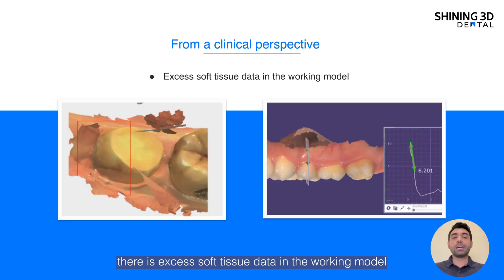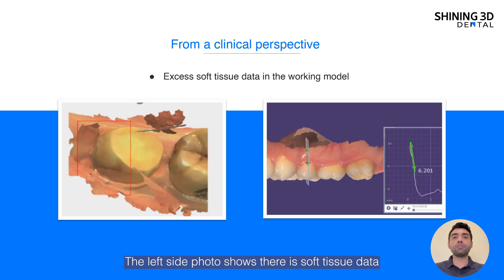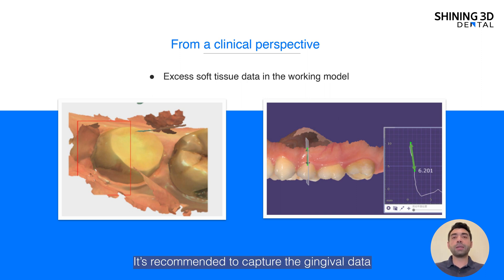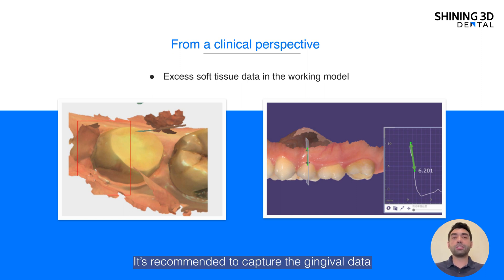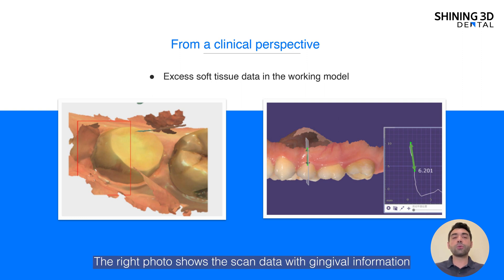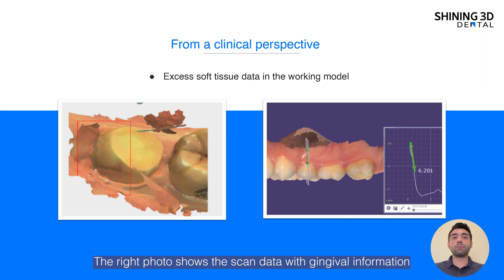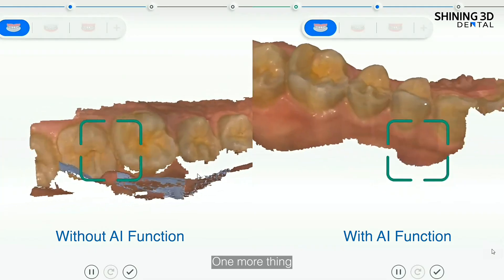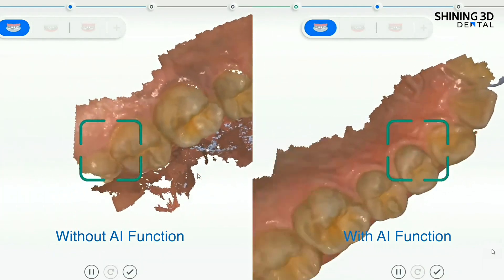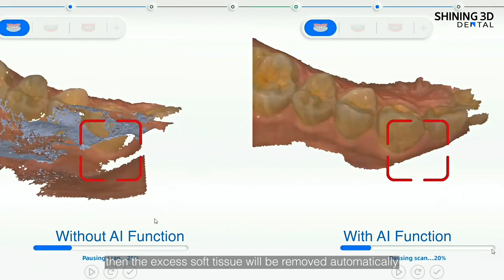Third, there is excess soft tissue data in the working model. The left side photos show that there is soft tissue data that covers the abutment. It is recommended to capture the gingival data with four millimeters below the margin line. The right photo shows the scan data with the gingival information. Do not forget to activate the AI function when scanning our patients — the excess soft tissue will be removed automatically.